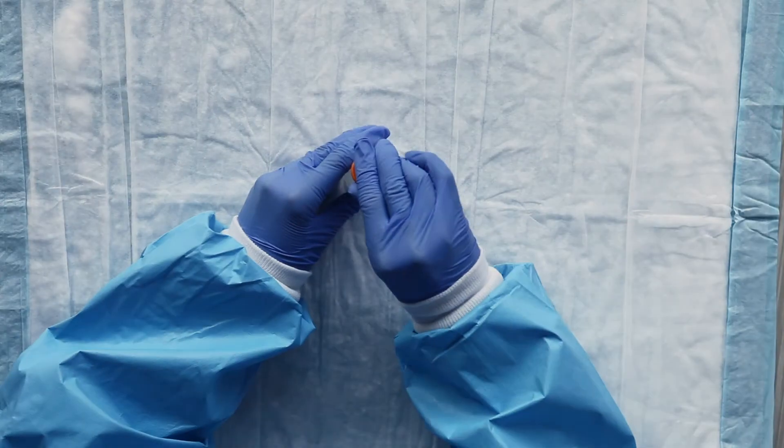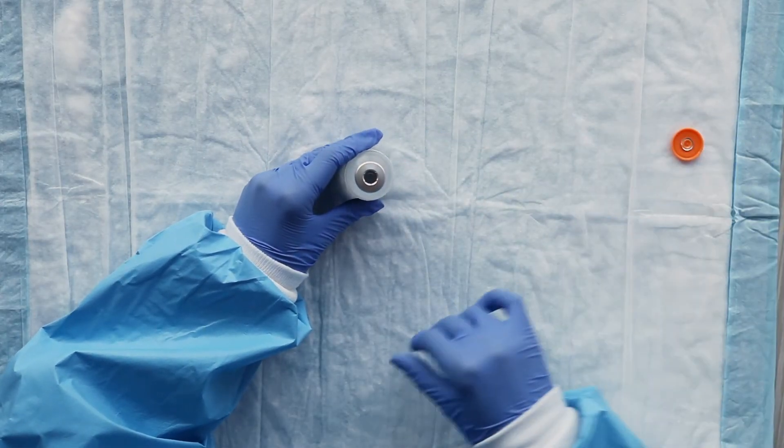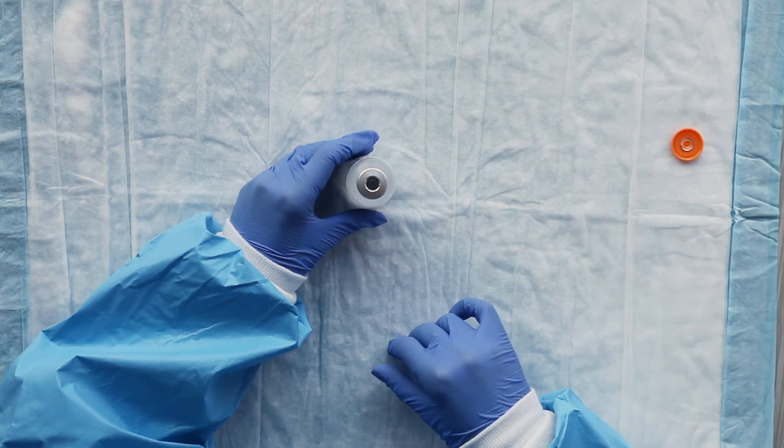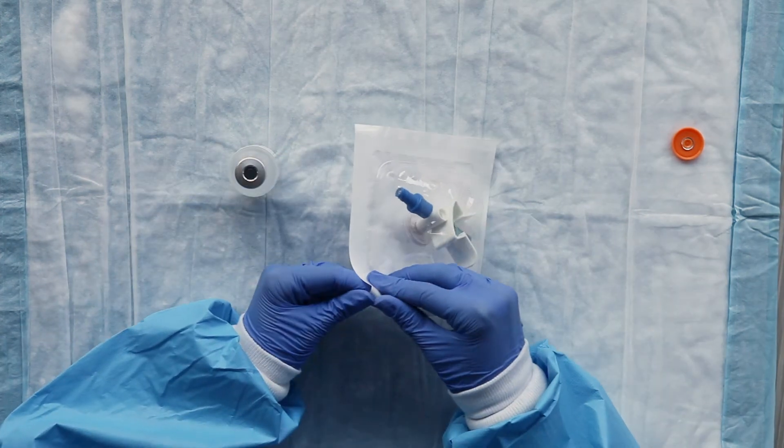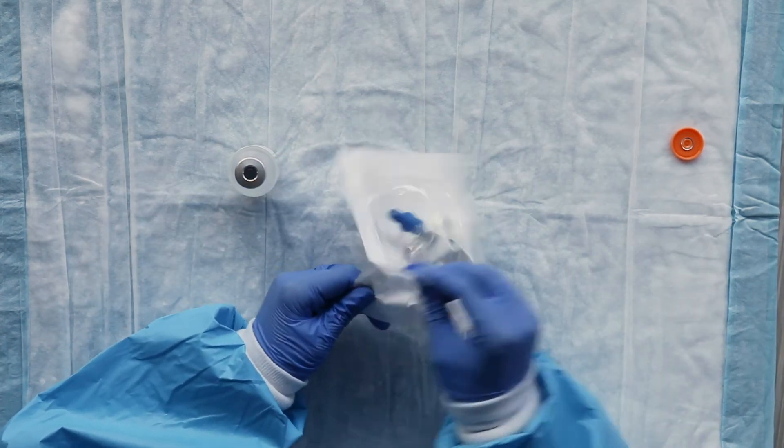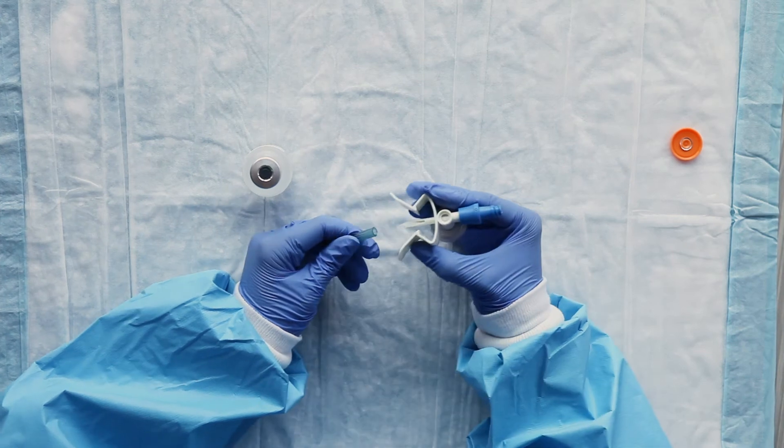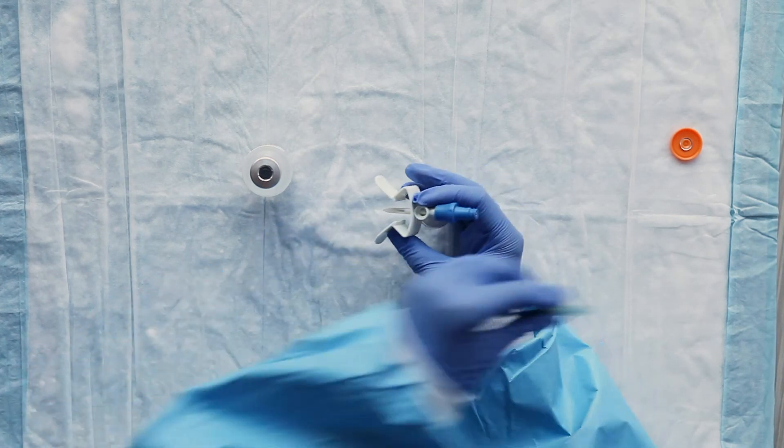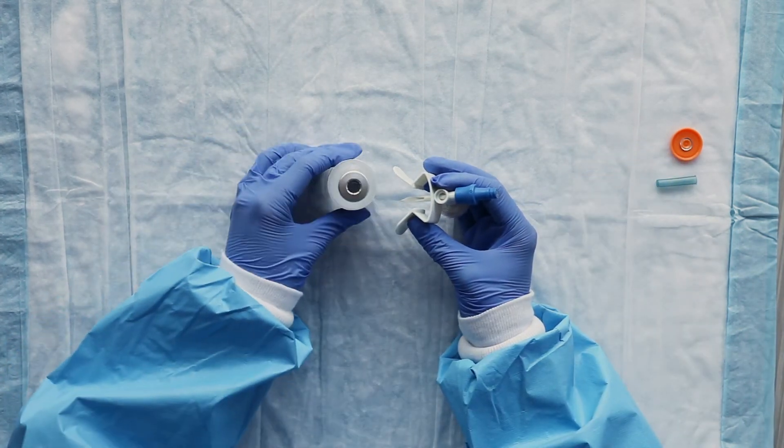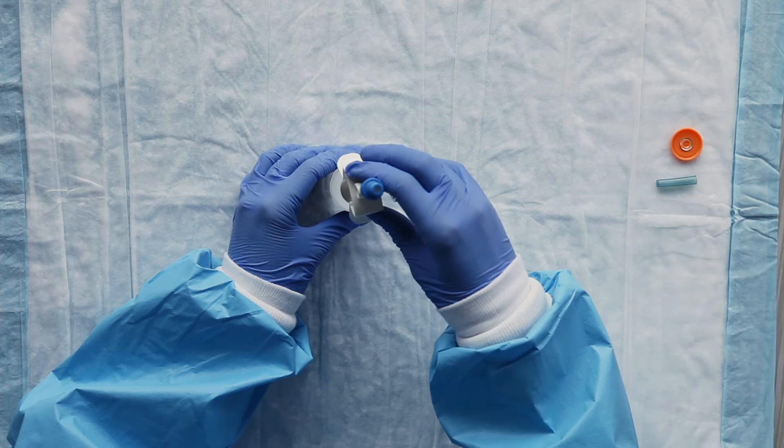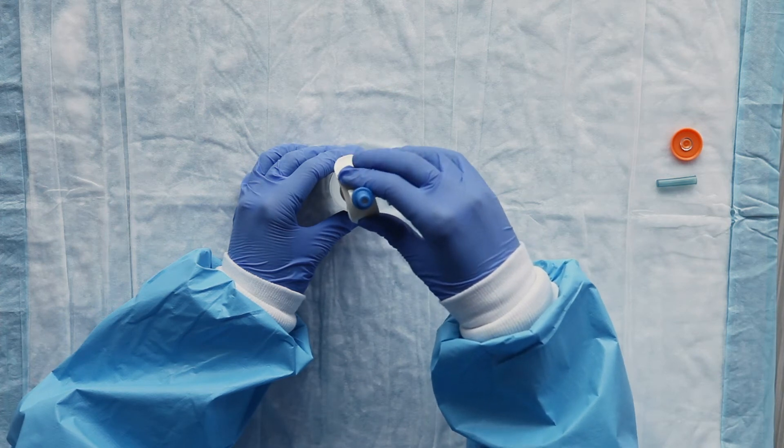Remove the plastic cap from the vial and place the vial upright on the counter. Remove the vial spike from its packaging. Take off the protective cover on the spike. Making sure the vial is upright, align the spike with the center of the vial closure.